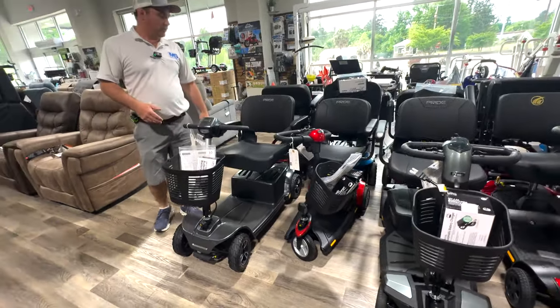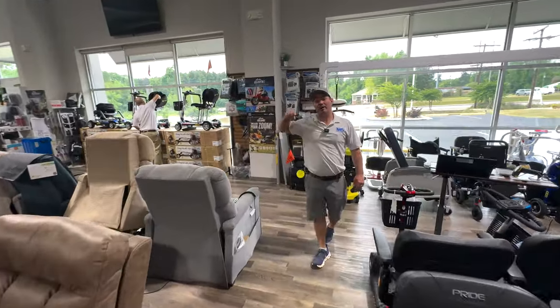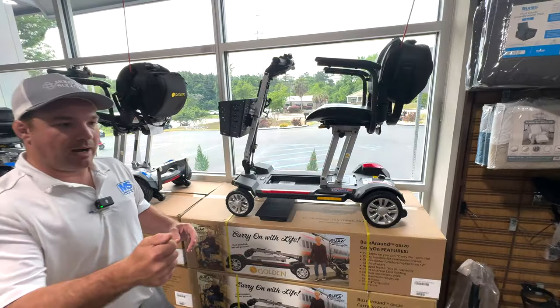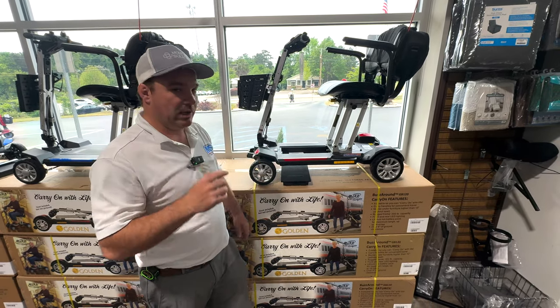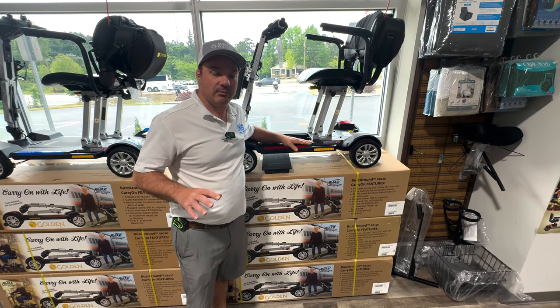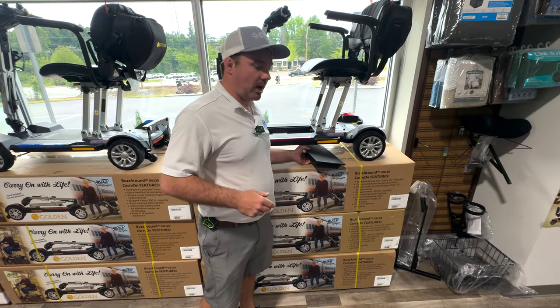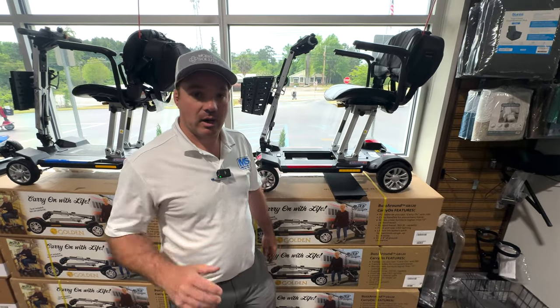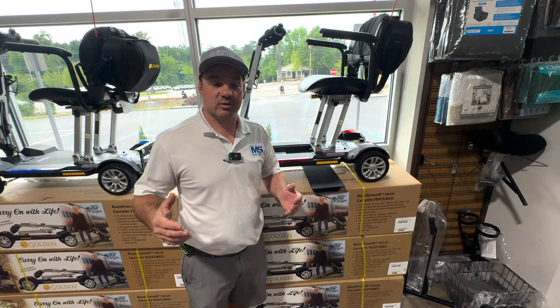Check out our Golden Buzz Around. The Golden Buzz Around GB120 is our favorite scooter because of how you can use leverage. A lot of people want the power fold-ups with the button, but they tend to be heavy. There's a lot of changes coming — we're going to be shooting videos explaining the different changes, but I think you're going to love this scooter. We still have it with a 15 amp-hour battery, which is an 18-mile range. If you're not traveling on an airplane, you can get that 15 amp-hour battery from us. They also have a new battery coming out — it's a TSA-approved battery, 300 watt-hour, up to 14 miles, that can be traveled on the airplane. We offer spare smaller batteries as a more affordable backup, like a reserve tank.